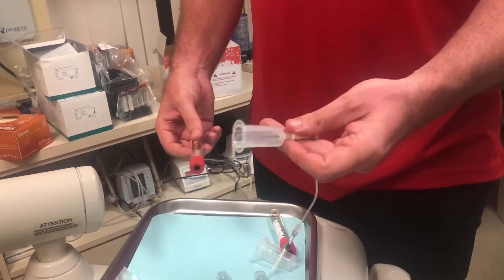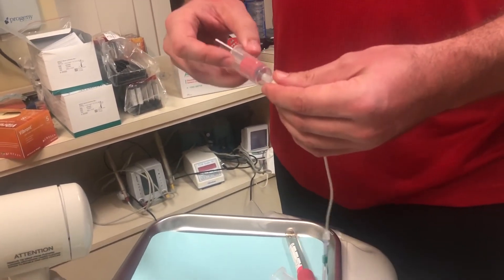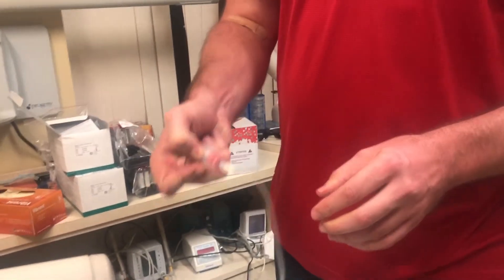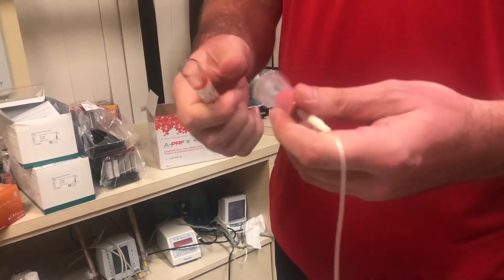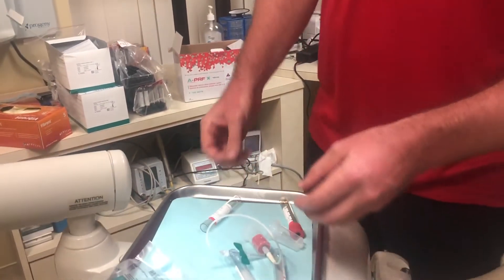I don't want people to struggle with this — some of these holders you can get in if you push hard, and we've shown that in the videos, but you have to push quite hard to get it in. It's not actually the rubber that's difficult; it's the fitting. And you can see it just popped out the needle there.